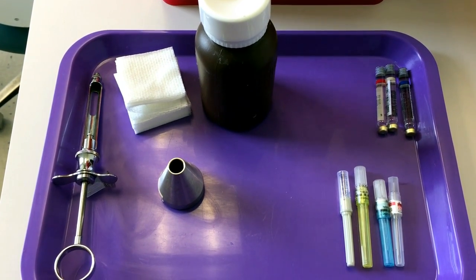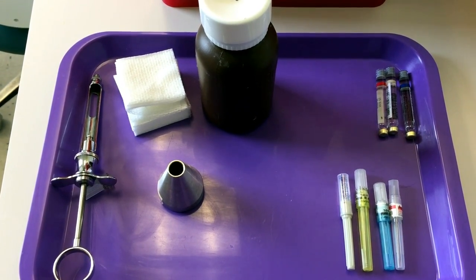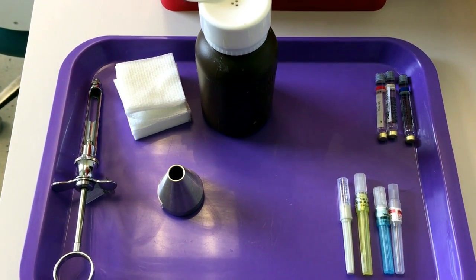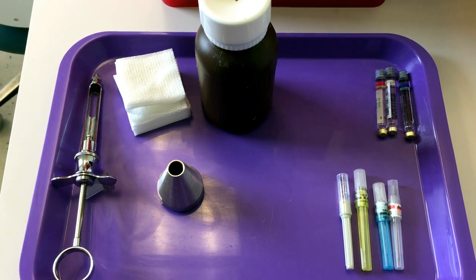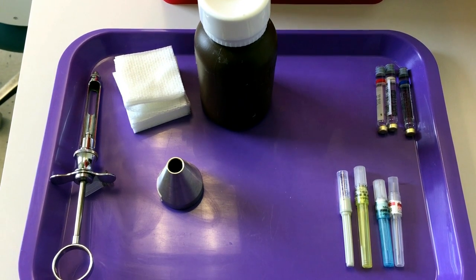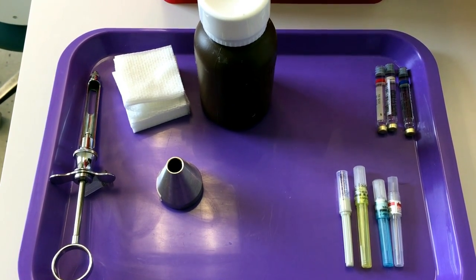Today I'm going to show you how to assemble a local anesthetic syringe, and we're going to go over the anatomy of the syringe as well as the needle and the carpule.